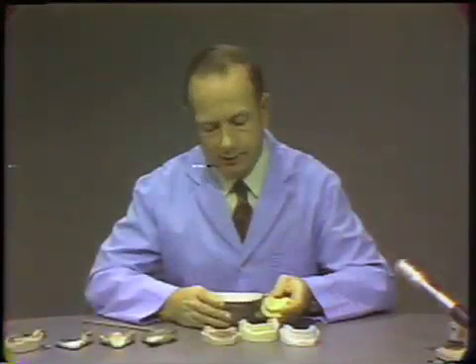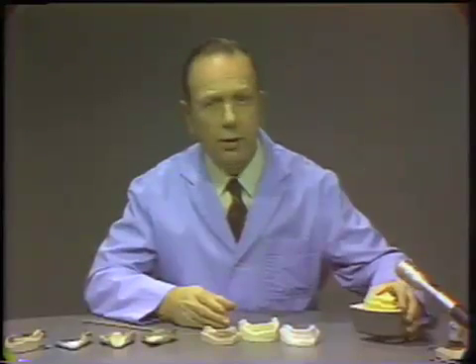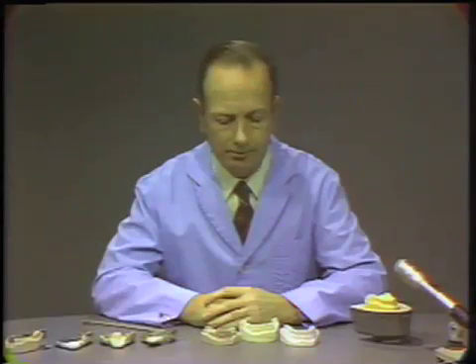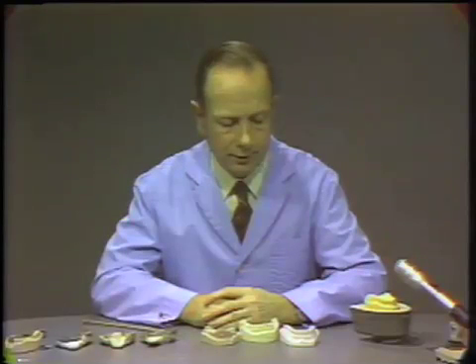Of the various model and die materials, we should indicate briefly the difference between the terms model and die. The term die is generally reserved for an individual tooth, while model would be for a multiple impression with many teeth or a full mouth impression. There's nothing mysterious about the terms, except that die is generally reserved for a single tooth.